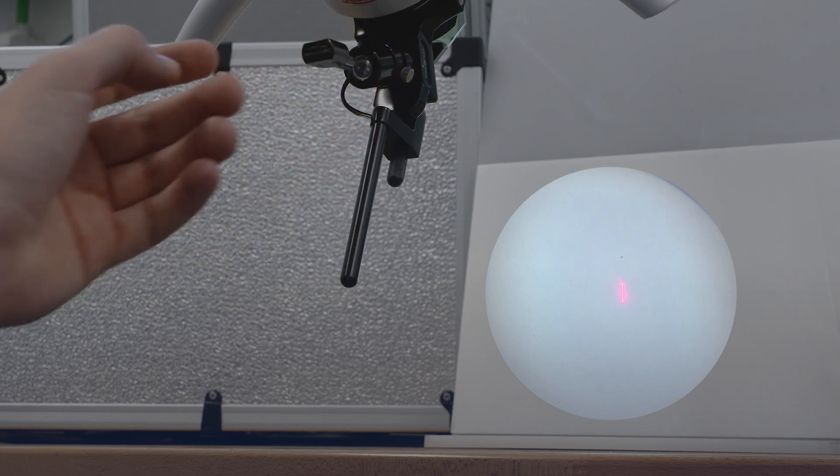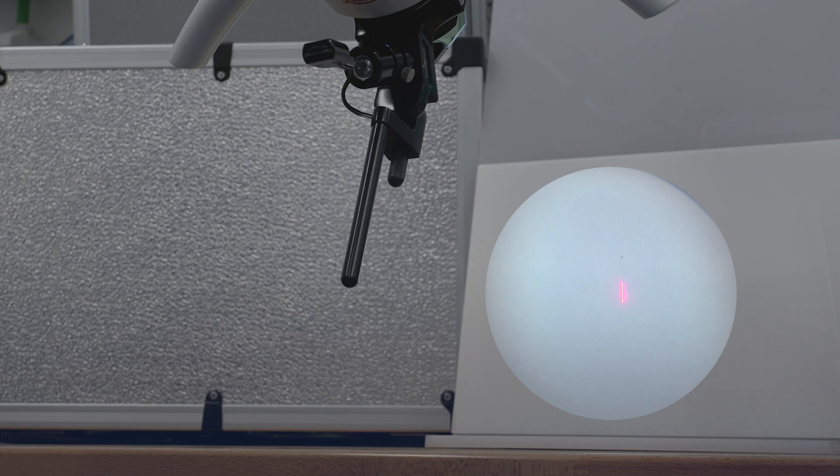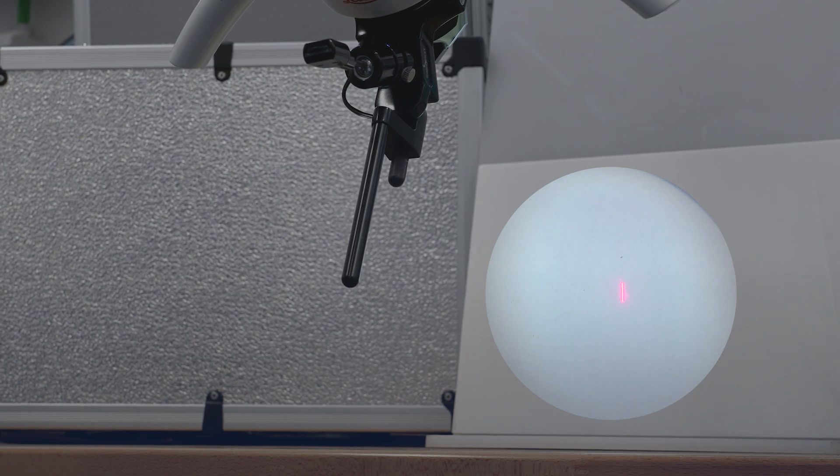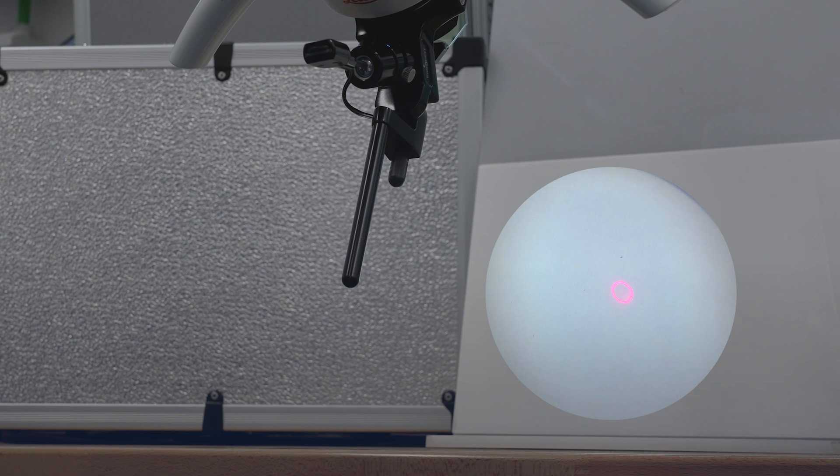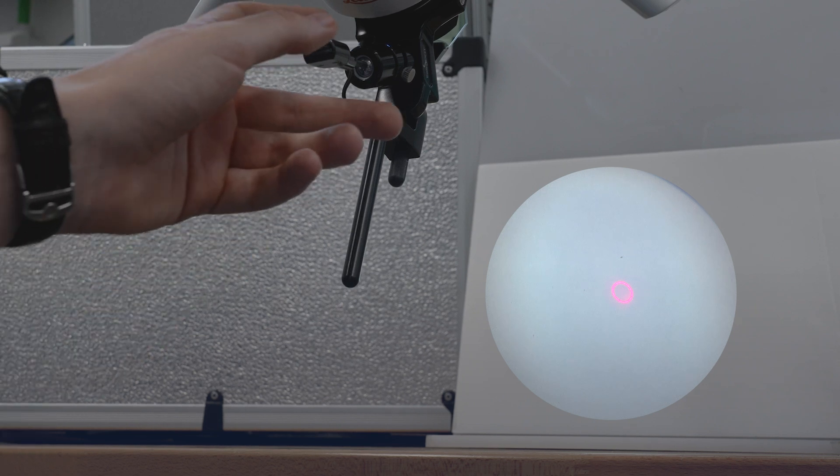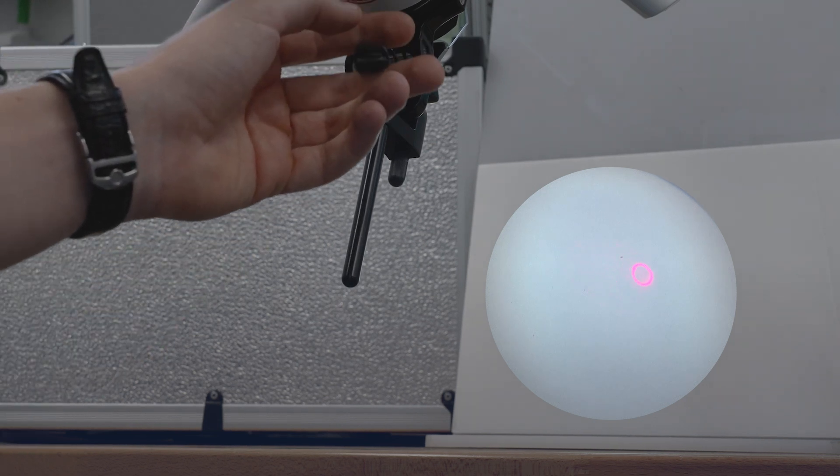The final option allows for the laser beam centering adjustment. As you can see now, we have a perfect circle. It means that the laser is perfectly centered and ready to operate.